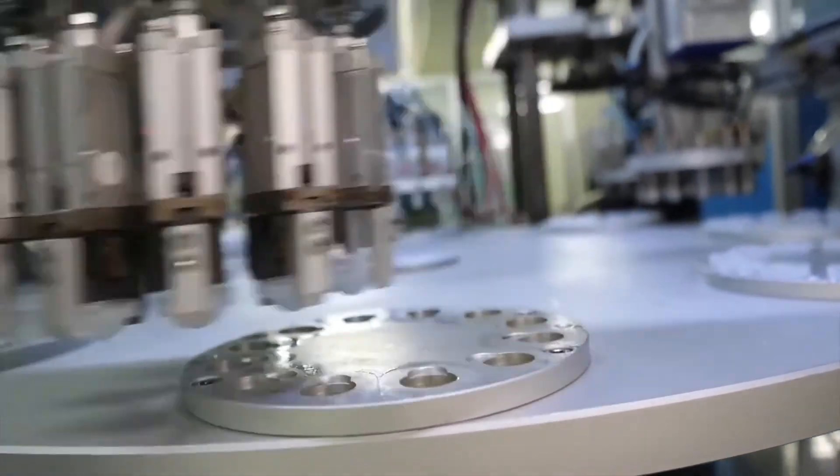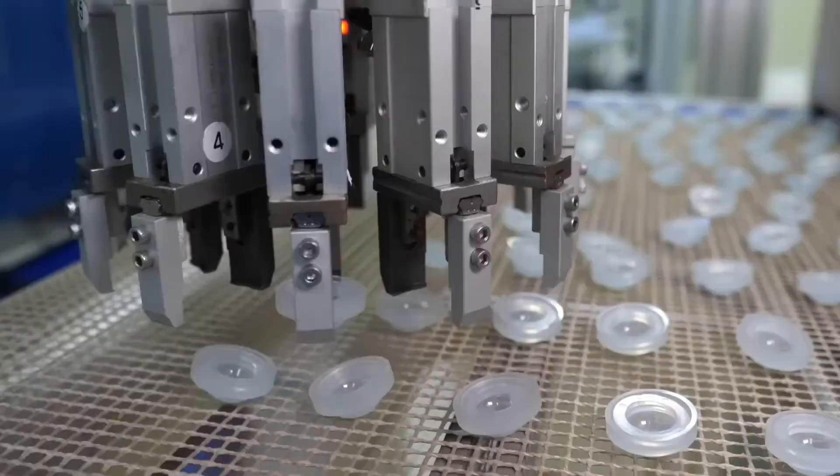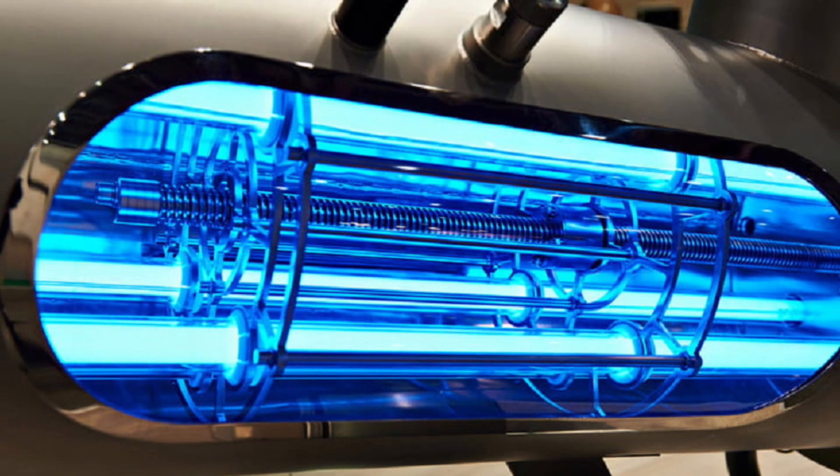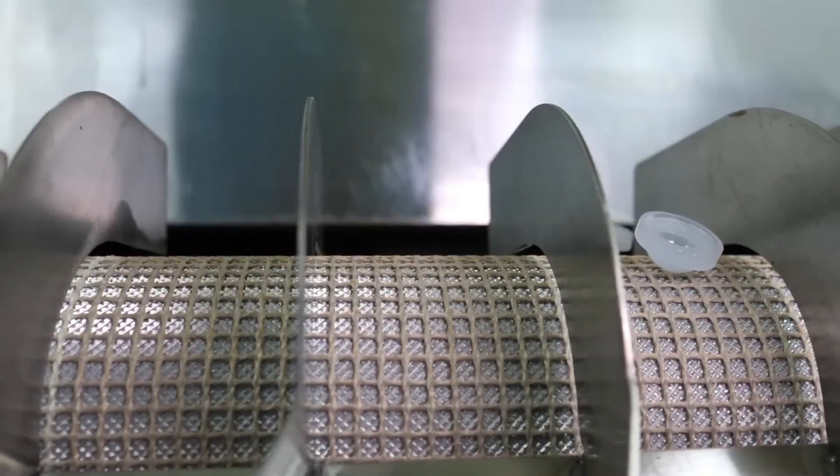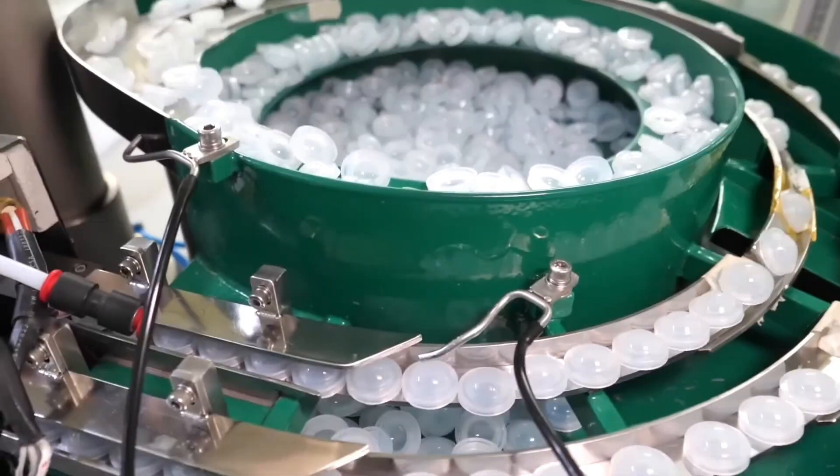Sealing the mold with more plastic holds the hydrogel in the shape it needs to be. Sometimes a curing process using UV light or heat solidifies the hydrogel into the lens shape. They're then moved onto conveyor belts where they cool off and are sorted.